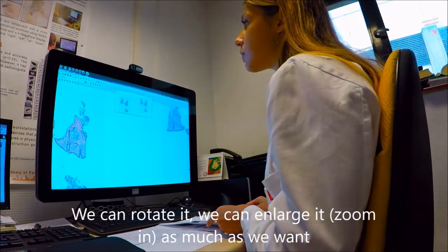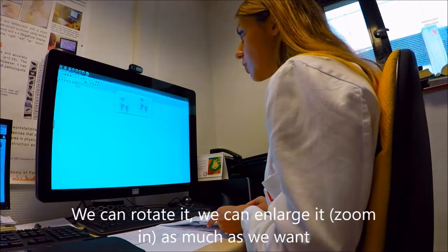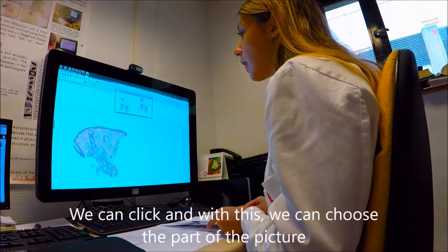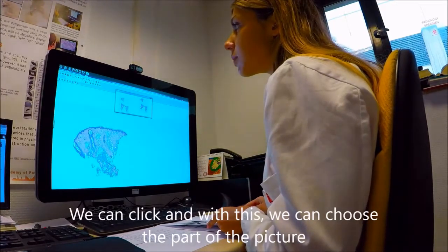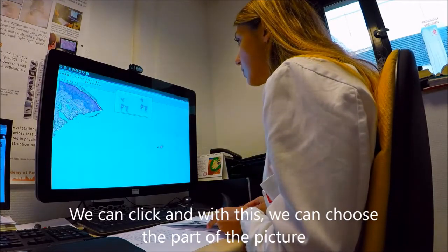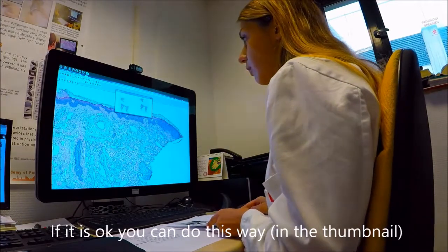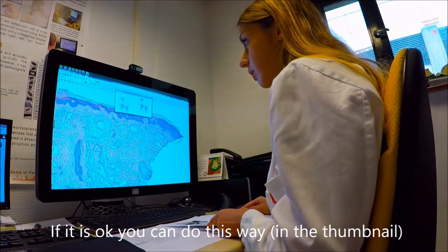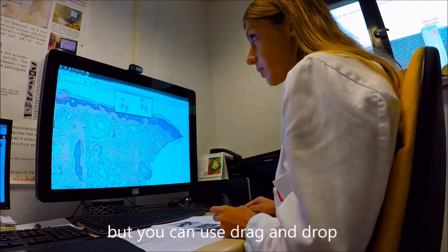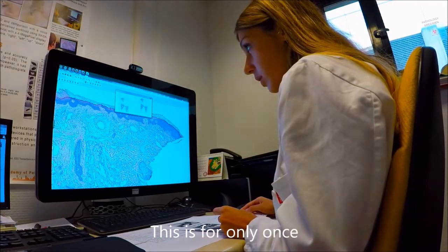So we can rotate it, we can enlarge it, zoom in as much as we want. We have a thumbnail here and we can click on it. And with this, we can choose the part of the picture. If you want, you can expand the picture in this way, but you can also use drag and drop. This is for only once, for example, like this.